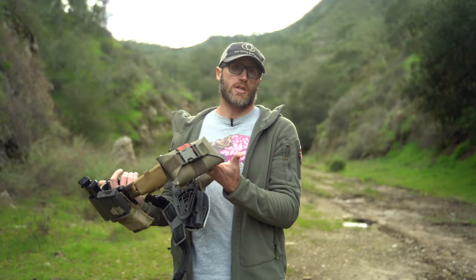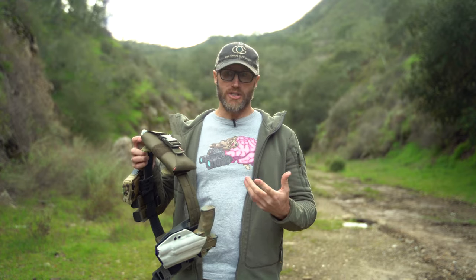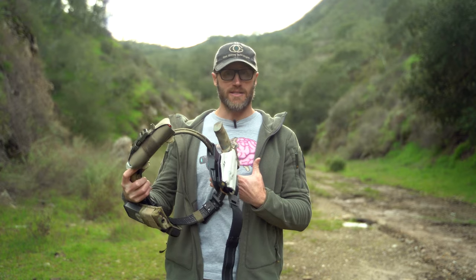So what is it? It is a trauma kit made to be carried on your belt or other gear — the idea being essentially all those essentials in a small footprint and easy to access. This is not like a bump-and-scrape kit; this is like a gunshot wound kit, something more serious than a band-aid. The idea is something you can mount in different configurations that isn't going to take up a ton of space and is really quick to access.